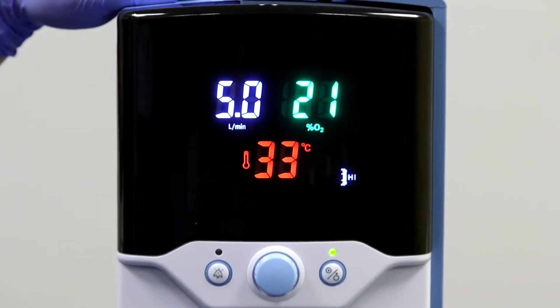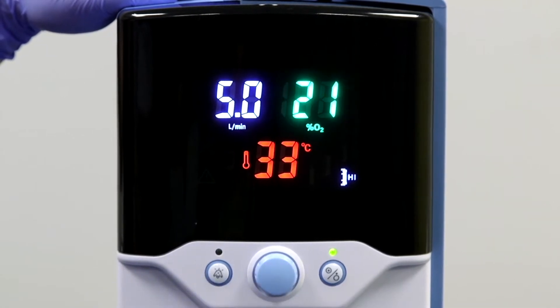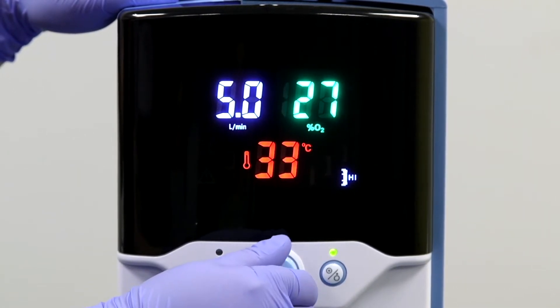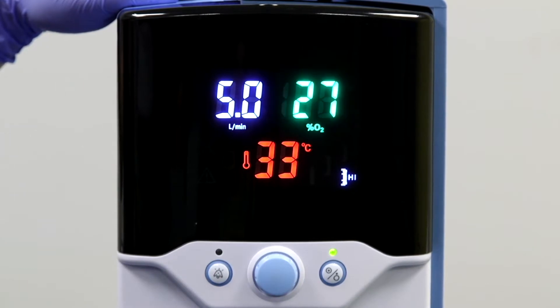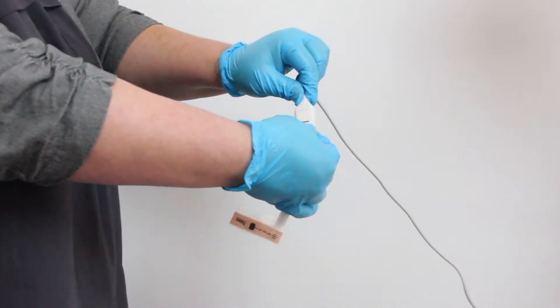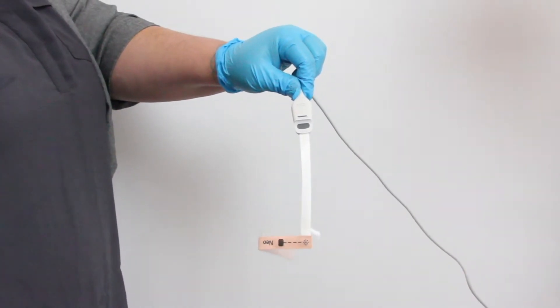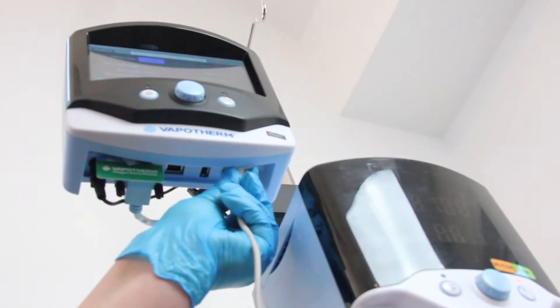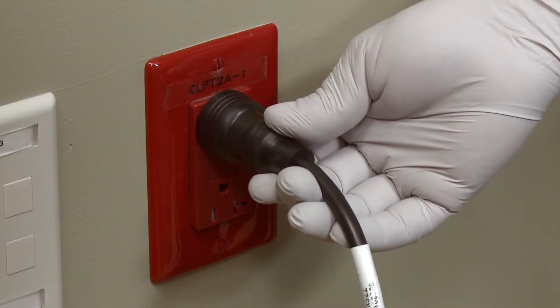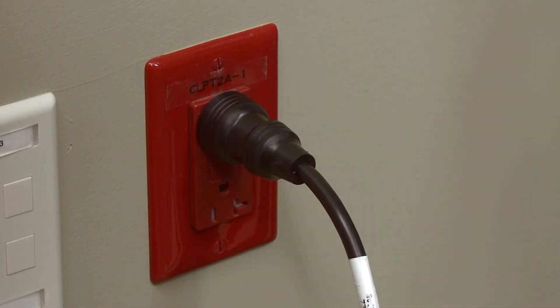Before starting the OAM's closed-loop control, please titrate your patient's high-velocity therapy manually to effect, comfort, and SpO2 stability. When you decide to use the OAM's closed-loop control, please connect an SpO2 probe to your patient, connect the probe via cable to the OAM, and plug the OAM in or switch it on using the on-off button on the front.